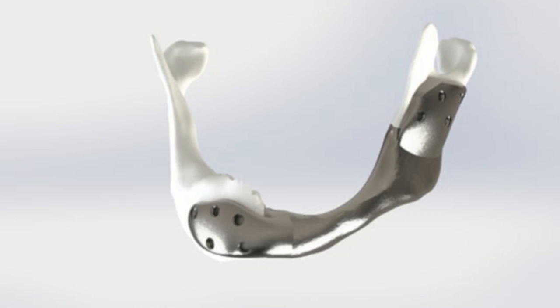When using only metal plates, these can break or extrude through mucosa or skin in about 40 percent of the cases, and the screws with which the plate is attached can come loose. This has dramatic consequences for the patient involved.